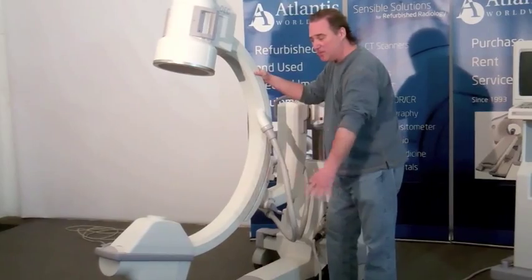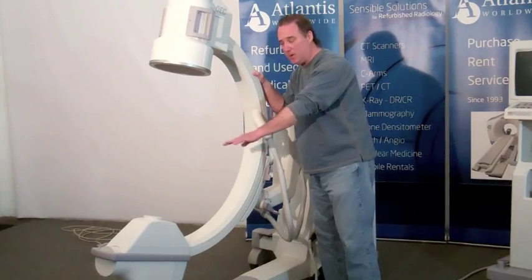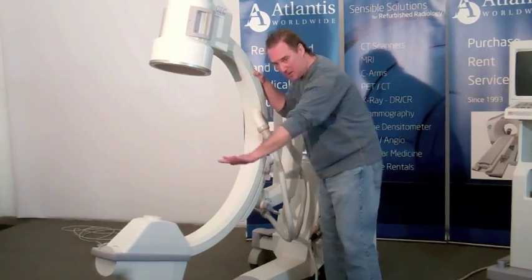There's going to usually be a C-arm table in the middle, where a patient is either prone or supine. So the image intensifier and the x-ray tube would be around the table which sits in the middle.